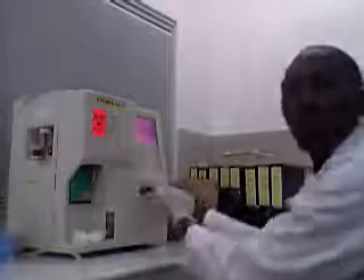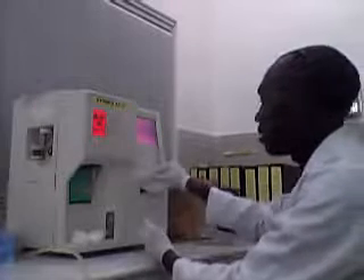Now these are the results — the printout as well. We can just collect them here. Let us cut this paper. We have our test results. We can see the HGB is 15 grams per deciliter, and other parameters that have been read from the test results.